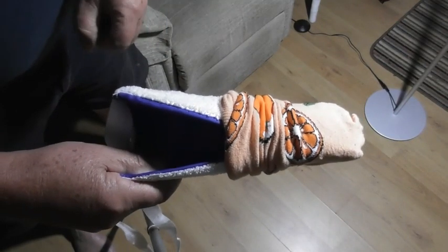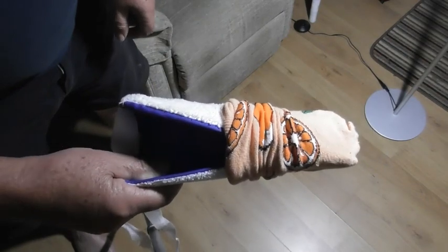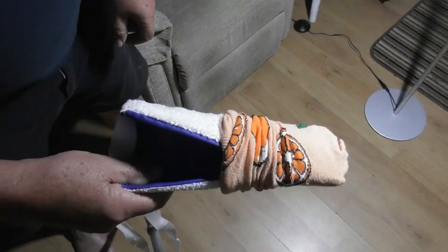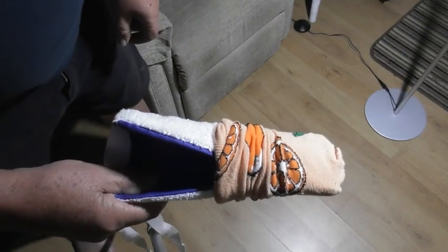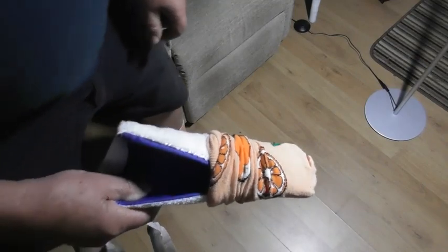You're better off sitting down unless you're very, very stable on one leg. It's safer to sit down to put on your sock. Make sure you wear very nice colourful socks! I shall now endeavour to sit down and hopefully show you how it pulls on successfully.